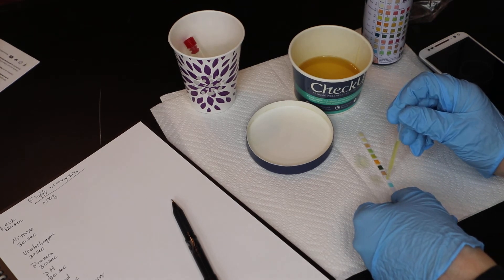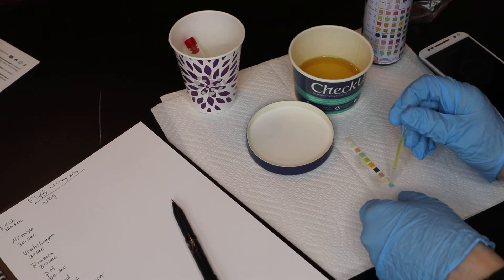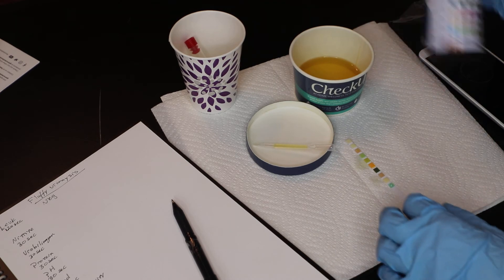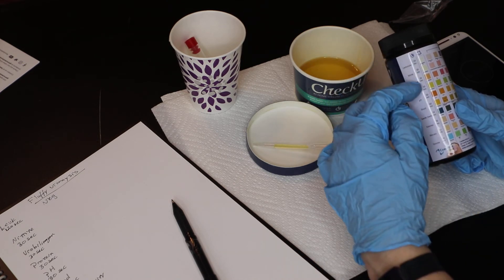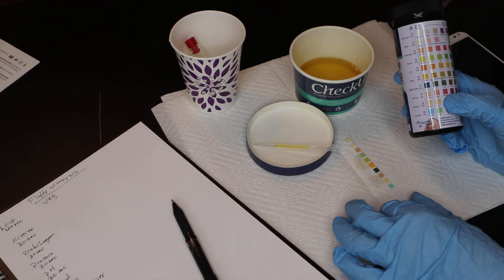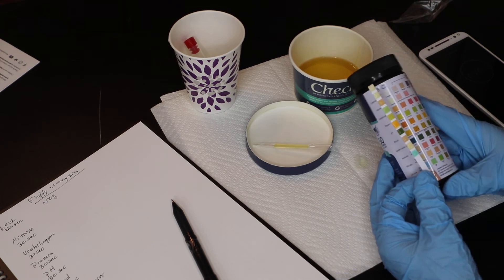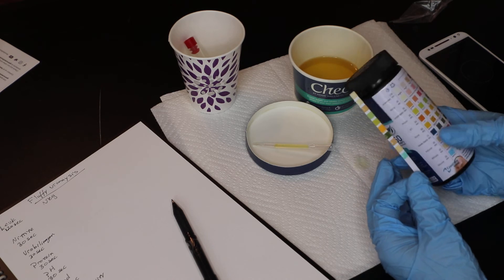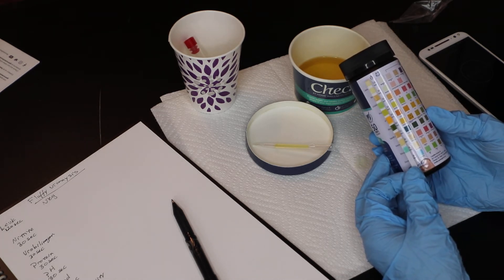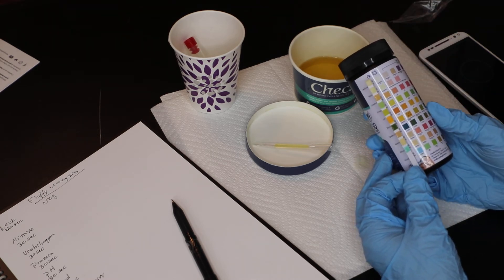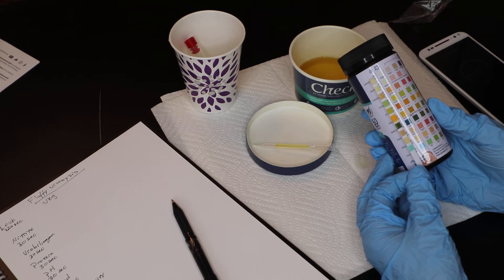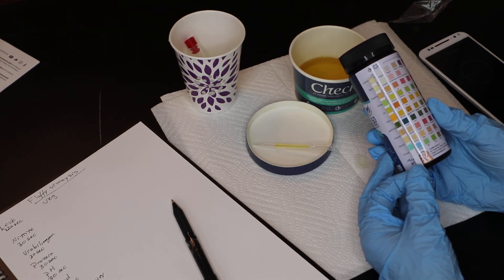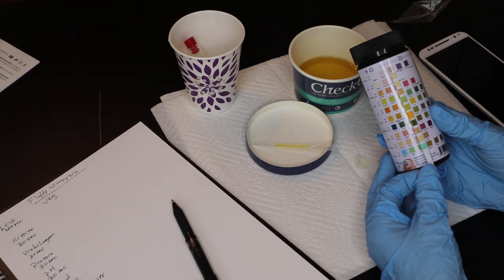And we've got two more at 30 seconds. Now, don't feel bad if you mess up like I did. And it shows you that there could be confusion as far as where to read these on the strips. So you've got to line it up with each of the pads and then read across. Don't worry if you mess up on one of the indices because you can always come back and do another strip. There are 50 strips in this test kit. So you have plenty to practice or run another one on the urine.